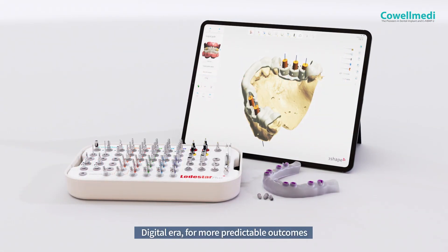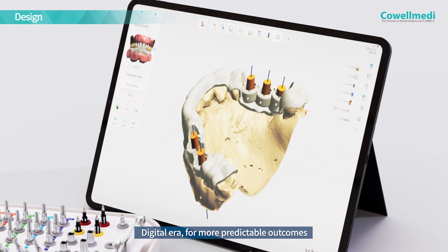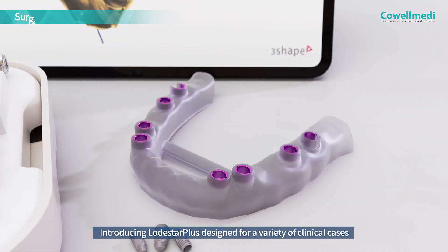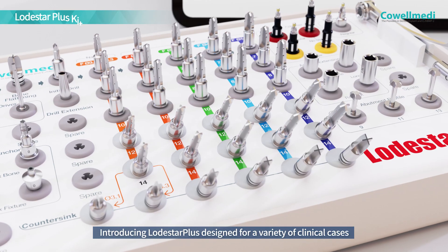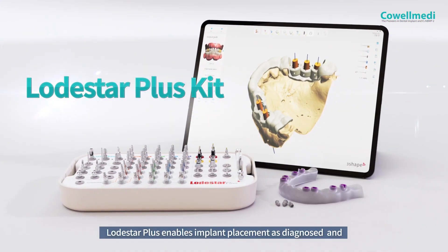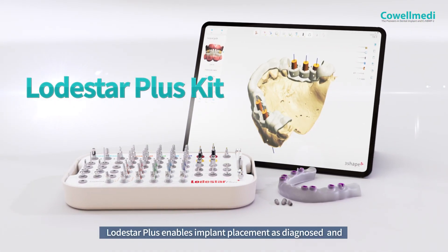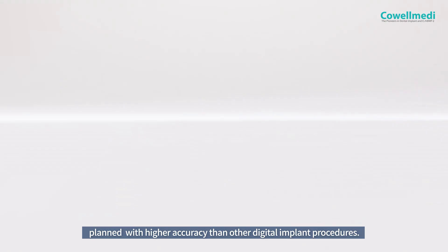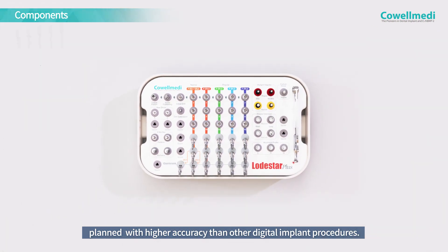In the digital era, for more predictable outcomes, introducing Lodestar Plus. Designed for a variety of clinical cases, Lodestar Plus enables implant placement as diagnosed and planned, with higher accuracy than other digital implant procedures.